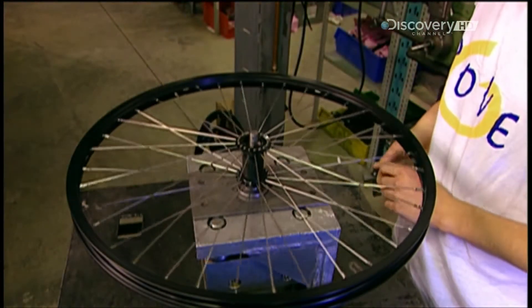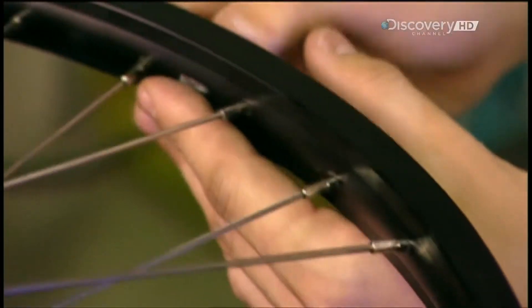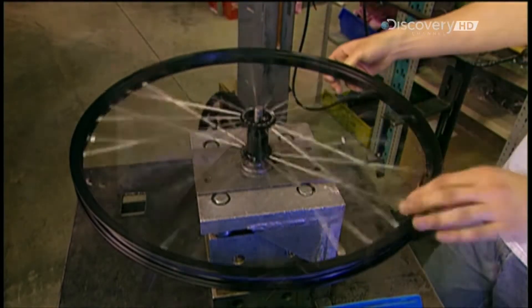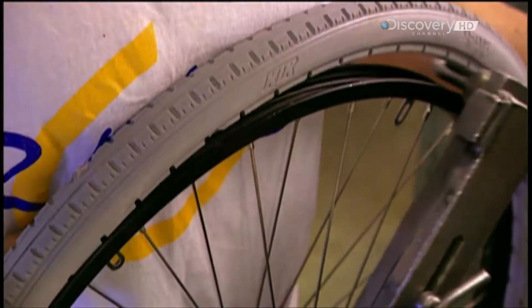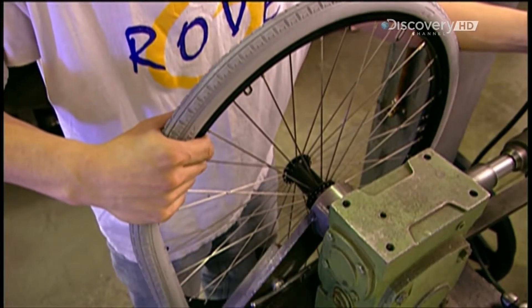The wheel rim is aluminium and the spokes are steel — much like a bicycle — except for six steel brackets that later fasten to a hand rim for propulsion. Tyres are either pneumatic, with an inner tube of air, or rigid, just one solid piece of rubber. A machine stretches the tyre to fit the wheel rim.